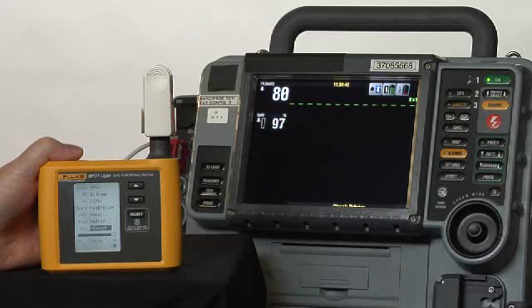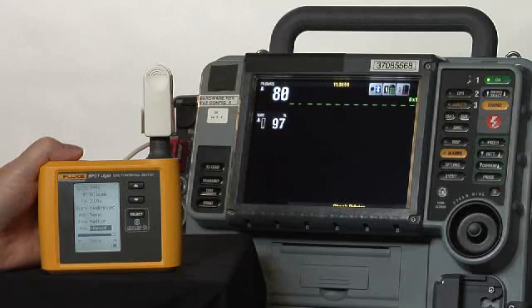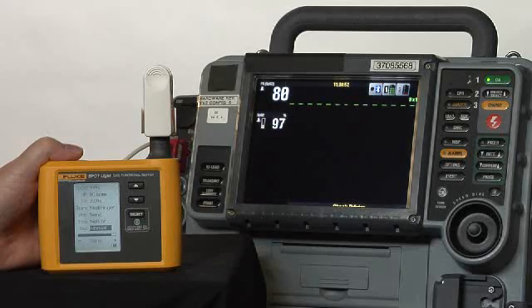You've tested 90% of it in right around 30 seconds. The SpO2 functional tester Spotlight, the newest member of the ProSim family.